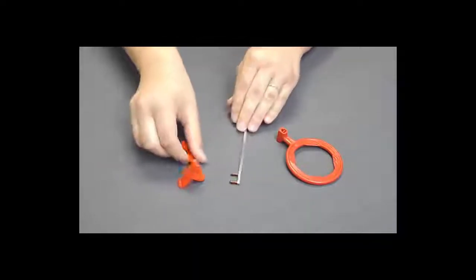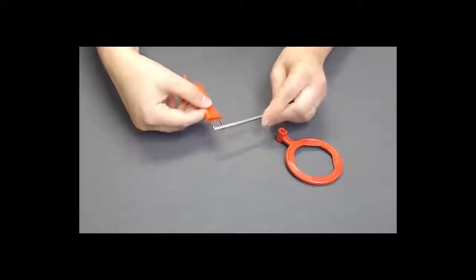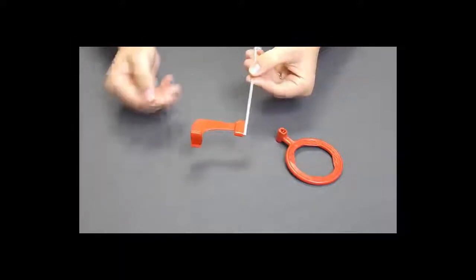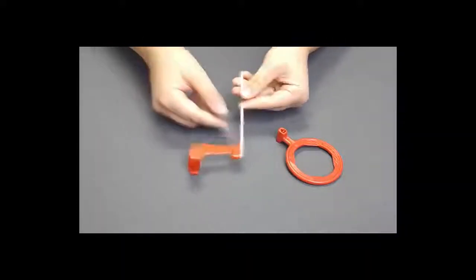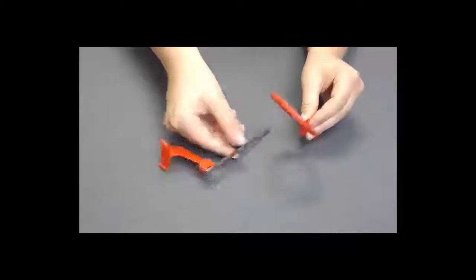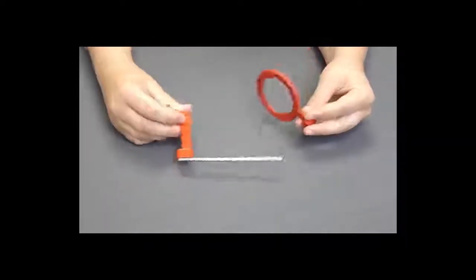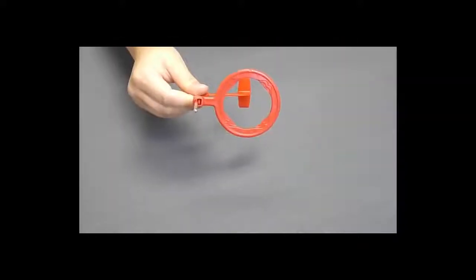To put this instrument together, you simply plug the bite block onto the bar using the prongs. When you hold the bar towards you, ensure that the portion that holds the phosphor plate on the bite block is facing away from you. Slide your ring on so that you can see your entire bite block through the ring.